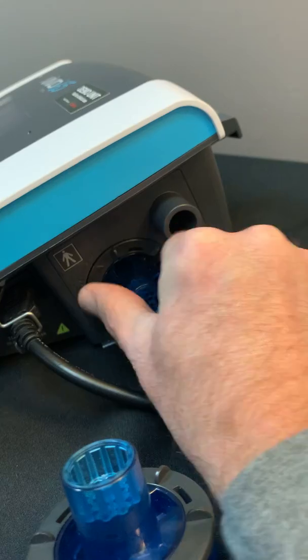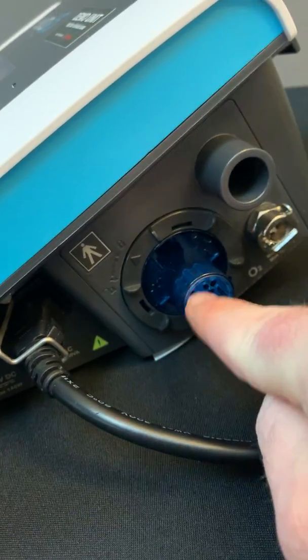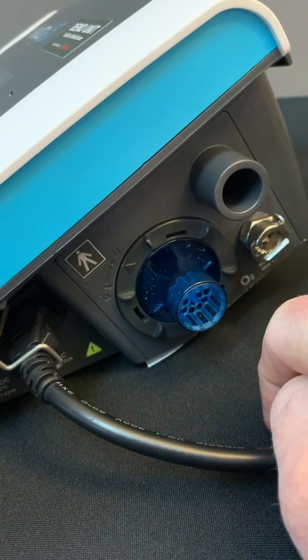And then you're going to take this plastic ring and then move it to the right into the lock position and now the exhalation valve is in place.